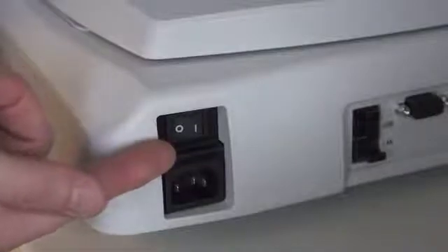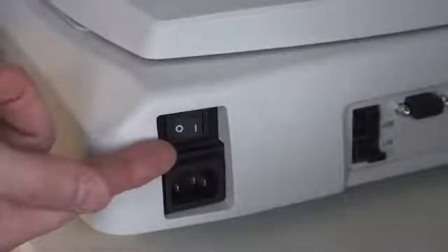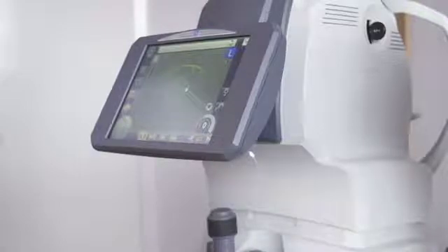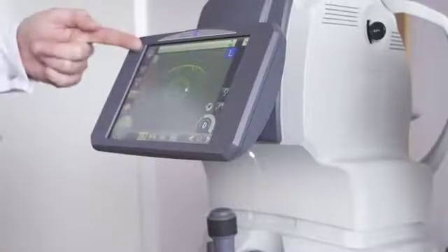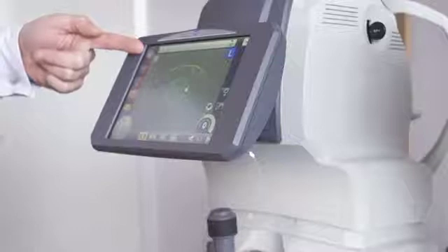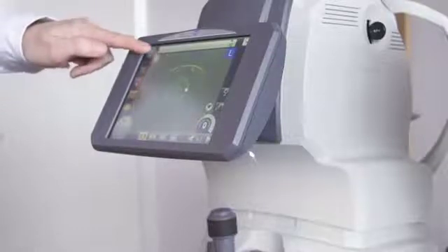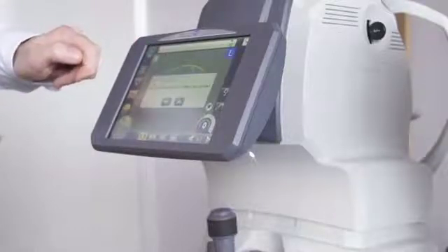On this side of the device is the main on-off switch. As you see, the screen at the moment is the main default start position for the AFC330. To run through the icons here, we have the off switch which is used to power it down once you are finished with the device.